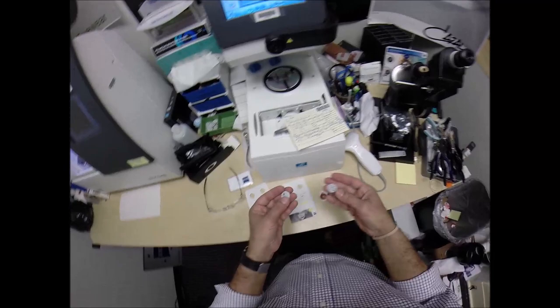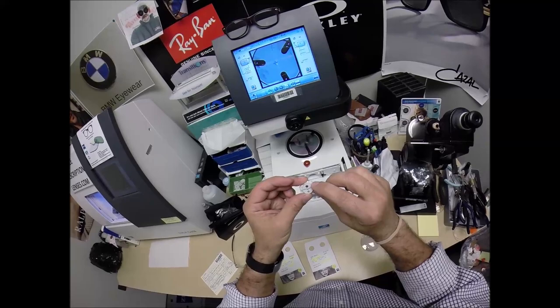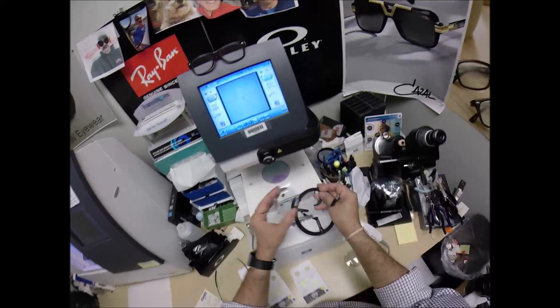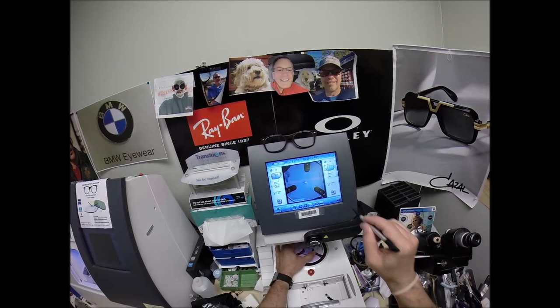This is a blocker — as I like to call it, Jenny from the block. I need to attach this to your lens while it is cutting, so I need two double-sided adhesive stickers. The black side is the sticky side. I'm going to stick that onto the first block, then do the same for the second one. Pull the paper away to make the black side sticky. That silver button on the back is a magnet — it's going to attach itself to another magnet in the arm. The three dots tell me it's oriented perfectly. Let me get everything exactly where it should be.